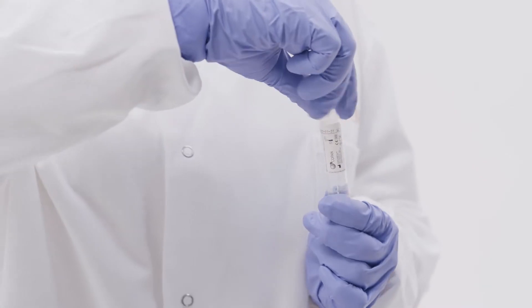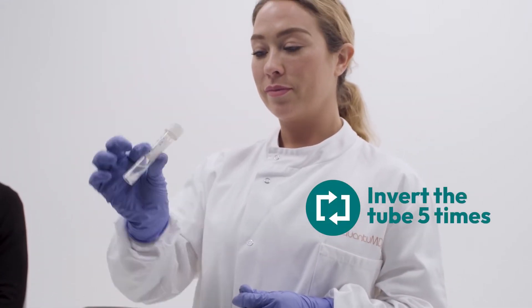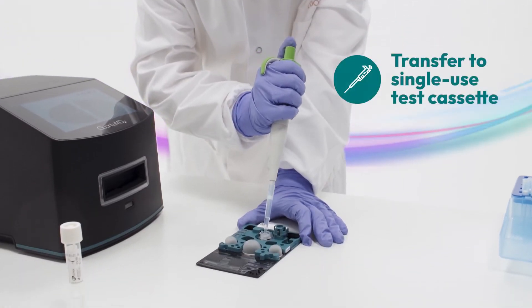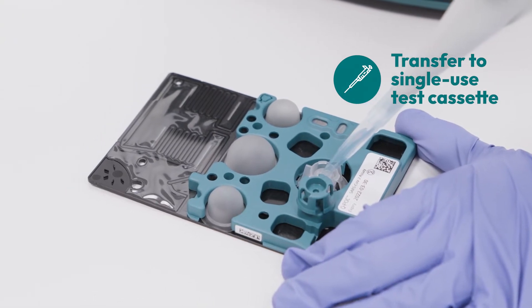After replacing the cap, shake the tube by inverting it five times. Transfer the sample from the specimen collection tube into the test cassette.